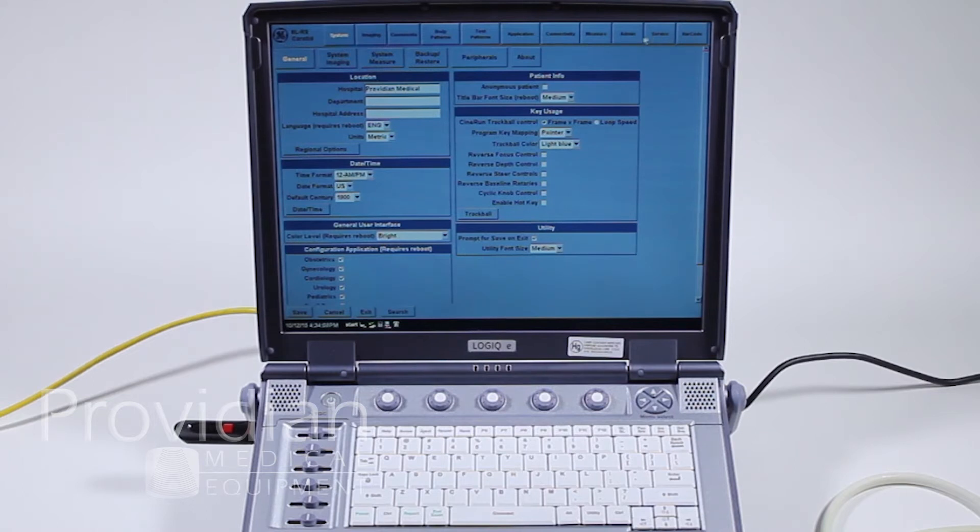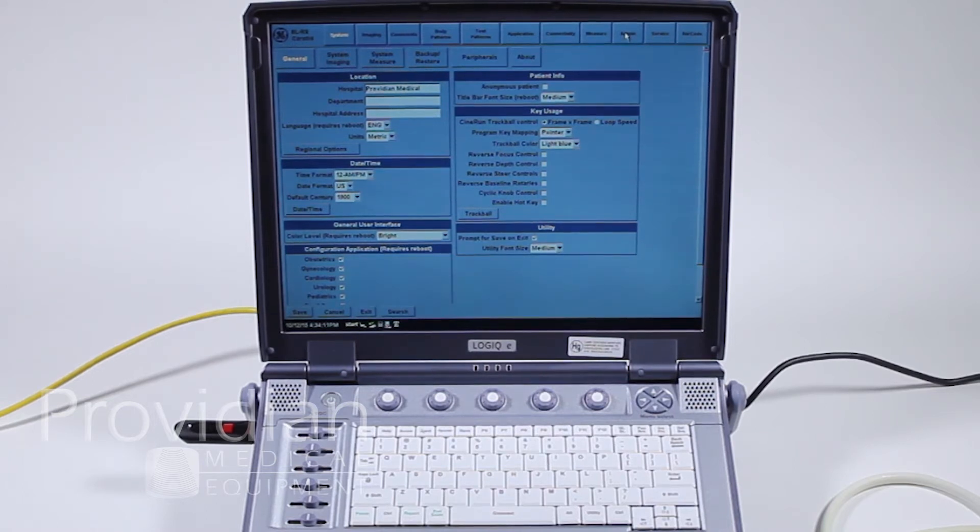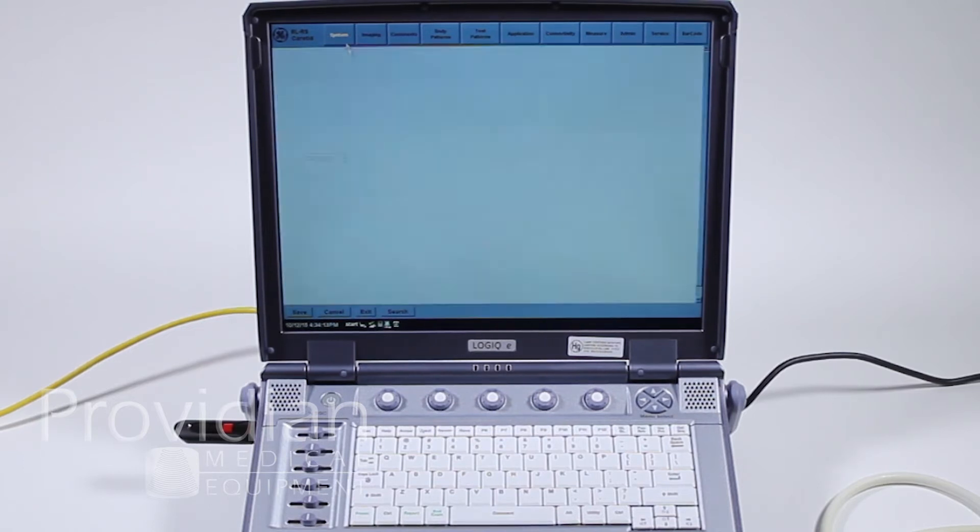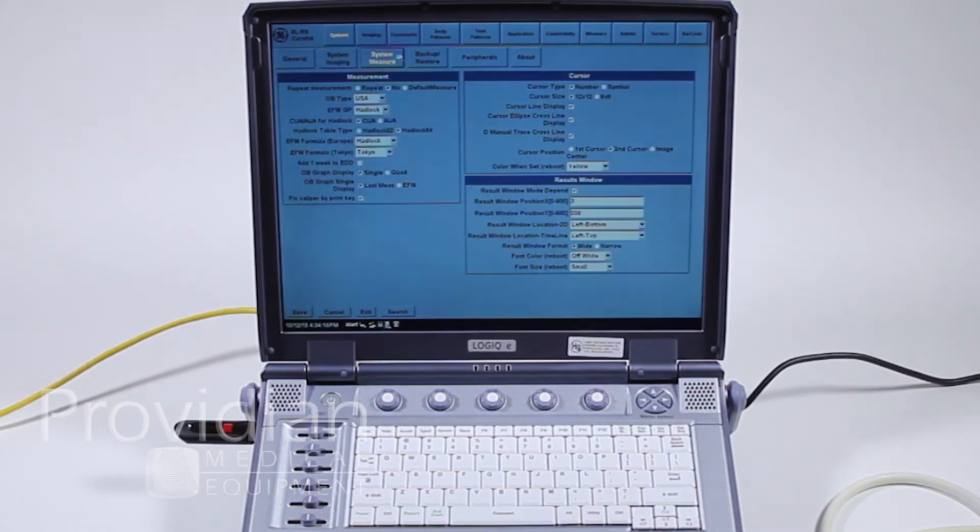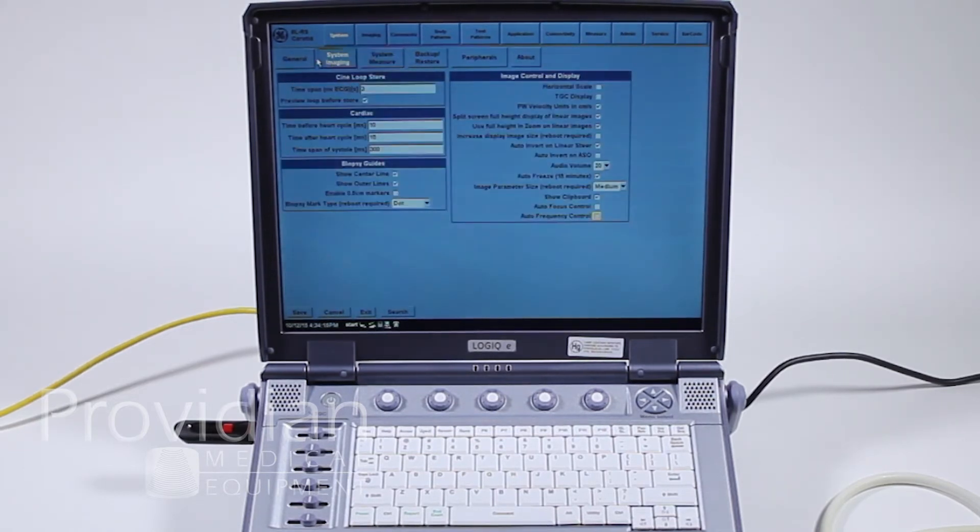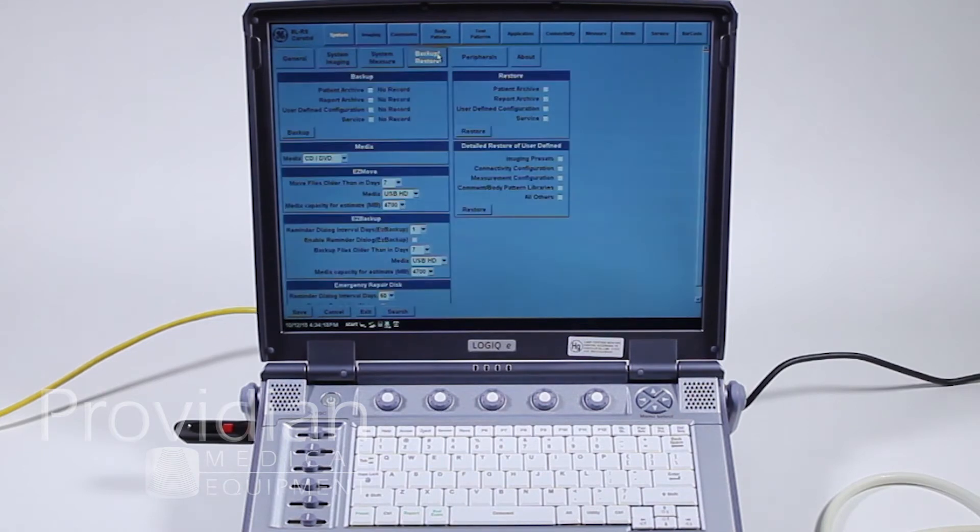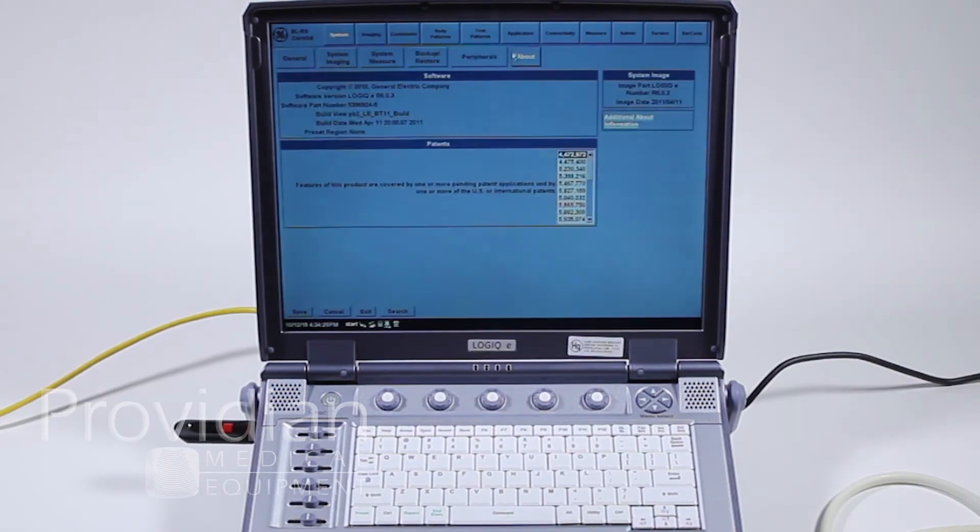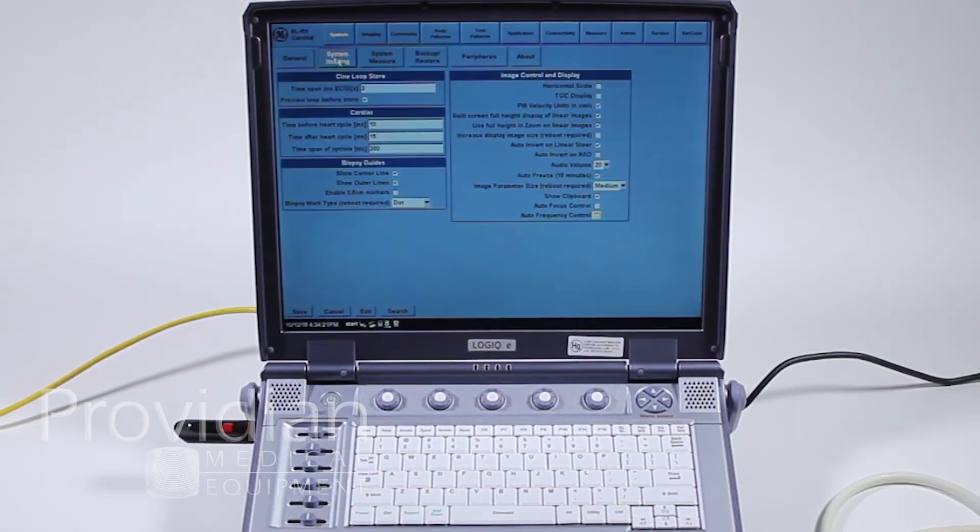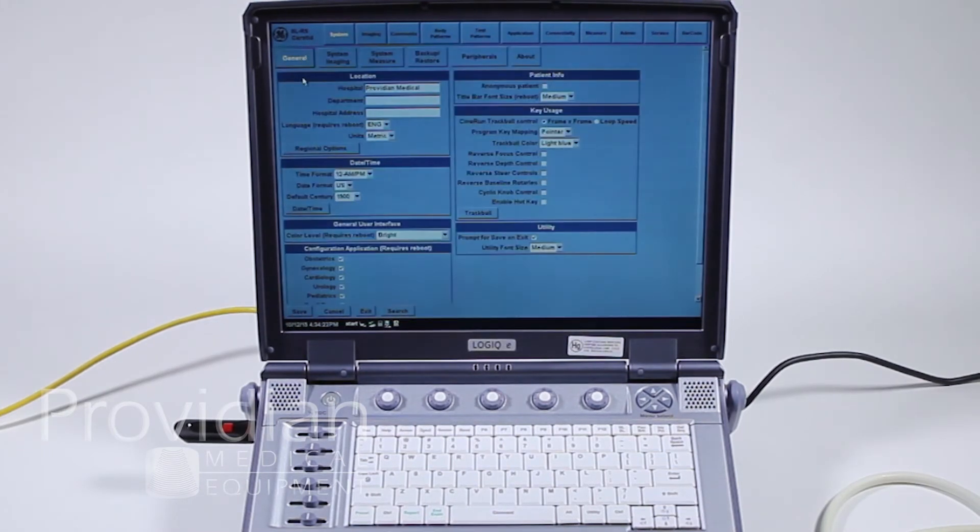These last three you're not going to worry about a whole lot. We already talked about what you need out of the admin side. So the system, and this is real finicky, every time you hover over something it changes the screen, not up top but along here. And it will drive you a little crazy, at least it does for me.